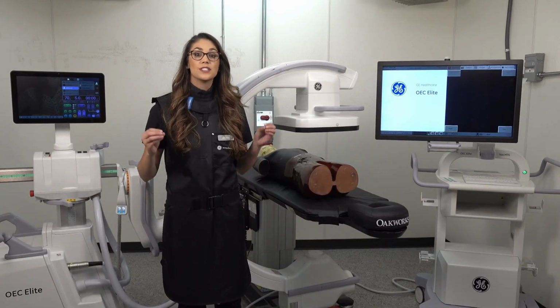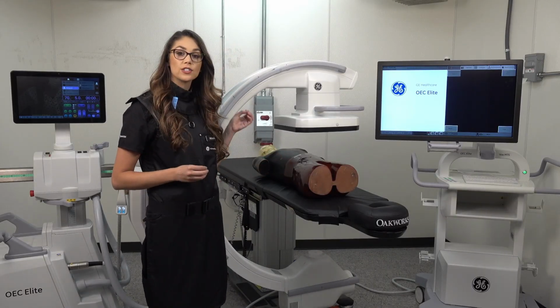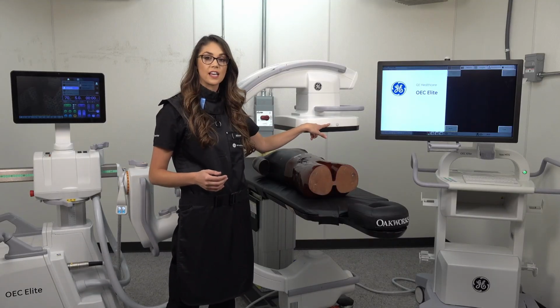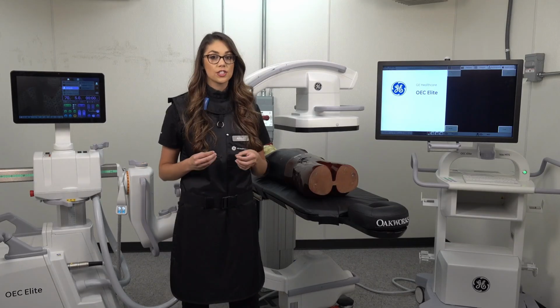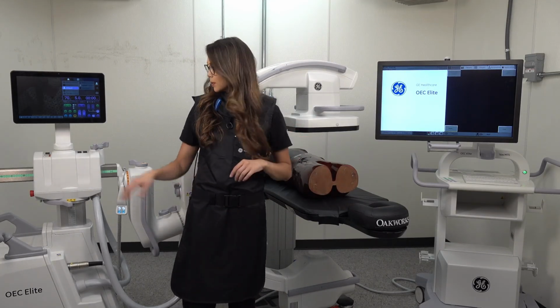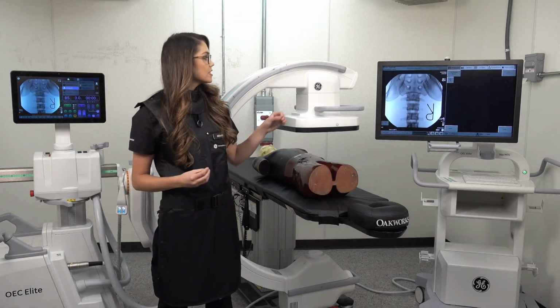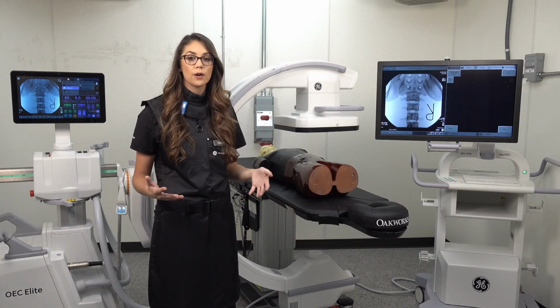Now this is our most difficult patient position. Reason being, our patient is now lying supine, but their head is facing away from our smiley face indicator. This is our opportunity to use both of our image orientation options. I'm going to start out by taking our picture just for purposes of this video. And you can see that this image is not anatomically correct. We are upside down, we are even backwards.